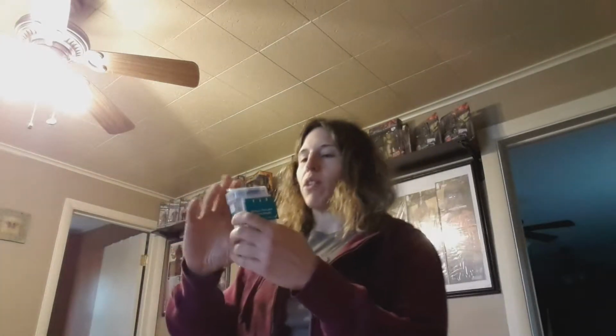So once the youth comes out of the bathroom, what we want them to do is make sure that they have closed the cap tightly on the top before they hand it to you. And then what you're going to do is put it on a flat surface, just like so, and make sure that that top is down nice and tight.